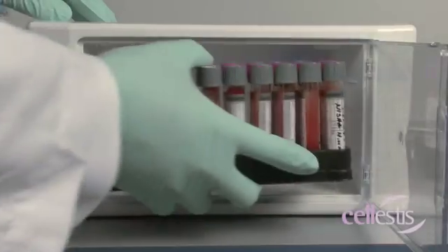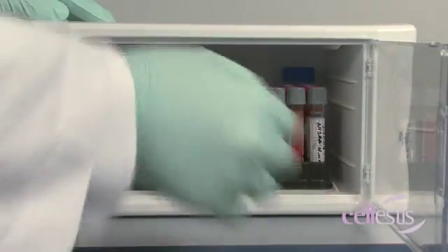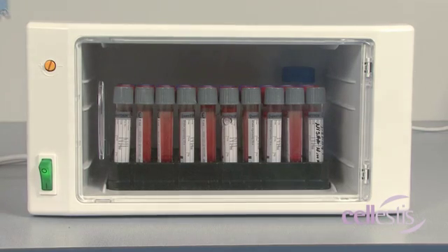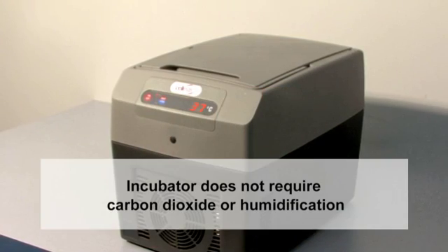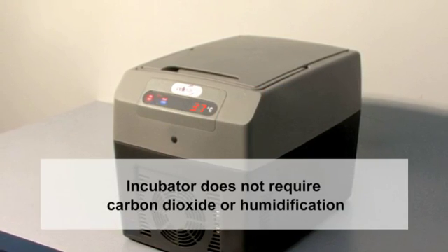For the incubation process, any standard 37 degrees Celsius incubator can be used. The incubator does not require carbon dioxide or humidification.